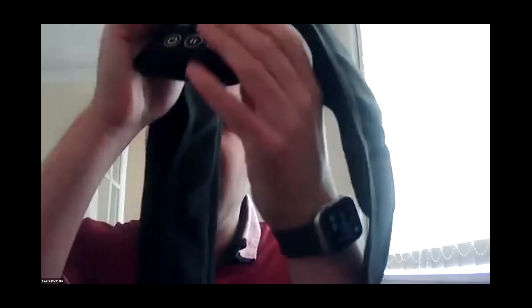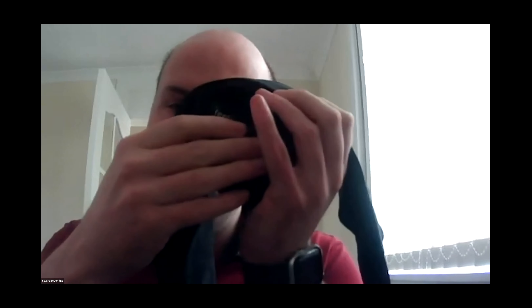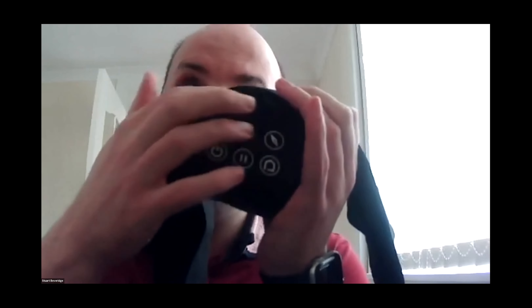The main part of the belt is the control panel — this is its brain. On the control panel, it sits in a little pocket to keep it safe, because there's so much in there: the compass, the battery, all the circuitry. On the front of the control panel, you have four buttons: a top button on its own above a row of three other buttons. The top button is the compass button, which gives you compass information and helps you cross the road.